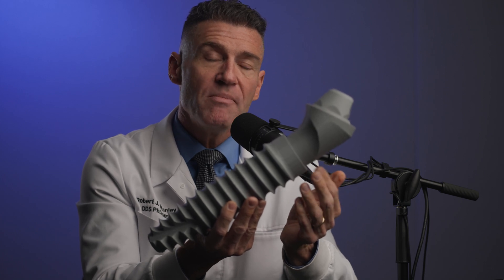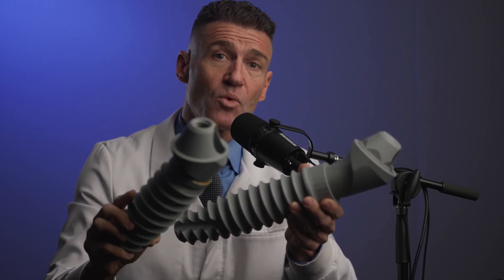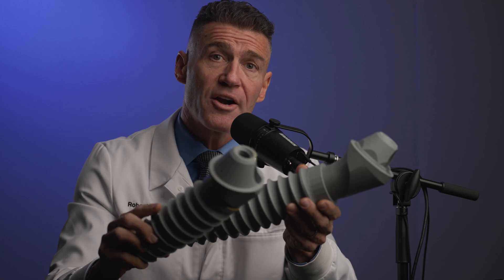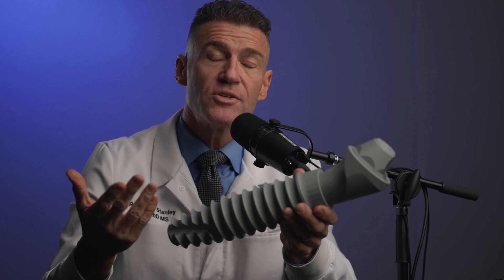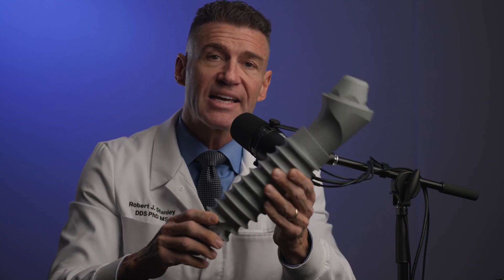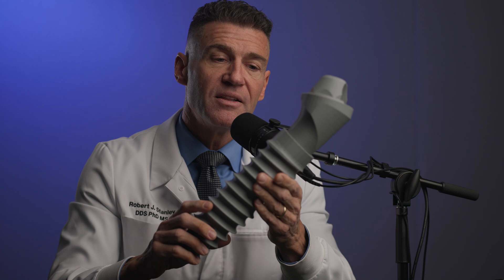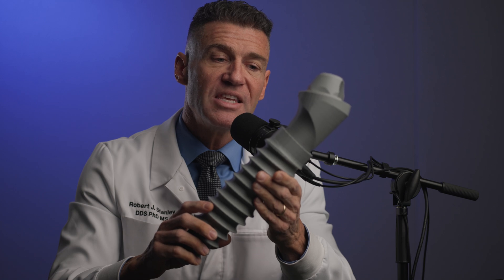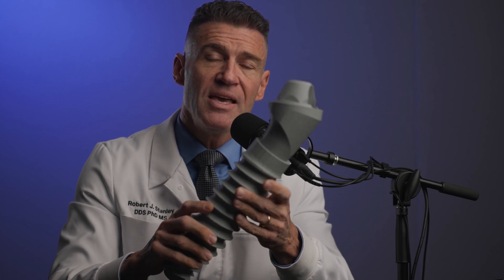This could take maybe a minute or two with a shallow conical seal on an all-on-X case. And if you add that up times six implants, you just added maybe six to twelve minutes to your surgical time. This takes seconds. I really want you guys to understand that the ease of use with a deep conical seal is where the main advantage is.